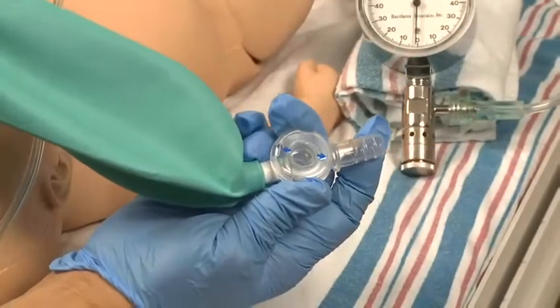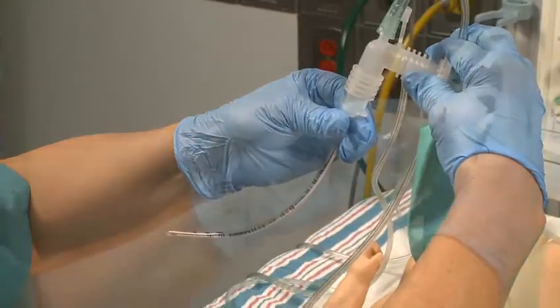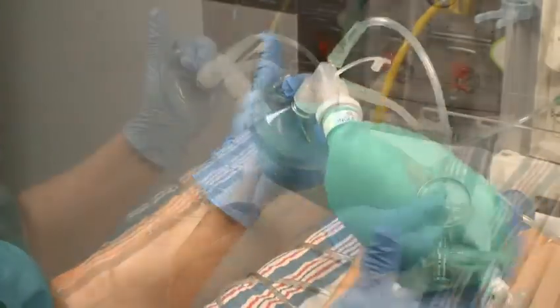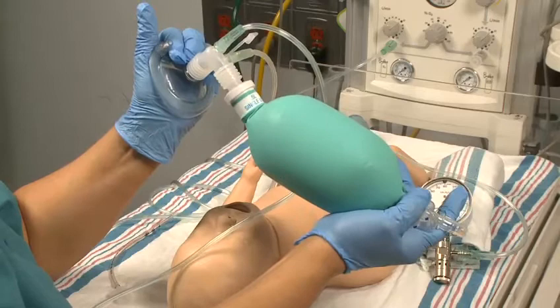The flow control valve provides an adjustable leak that allows you to regulate the pressure in the bag when the bag is connected to an endotracheal tube or the mask is held tightly on the patient's face. The adjustable opening provides an additional outlet for the incoming gas and allows excess gas to escape rather than over-inflate the bag or be forced into the patient.